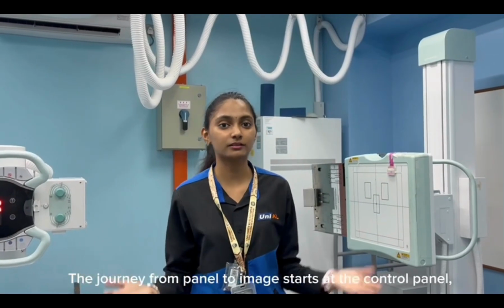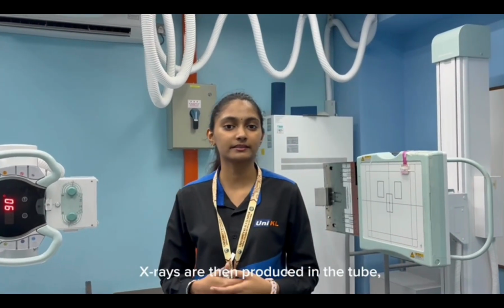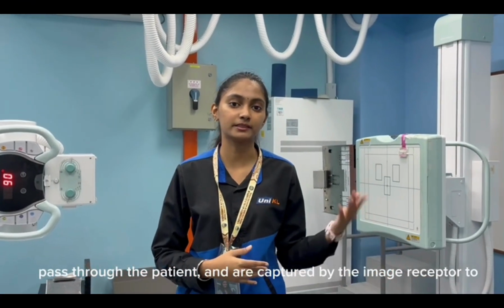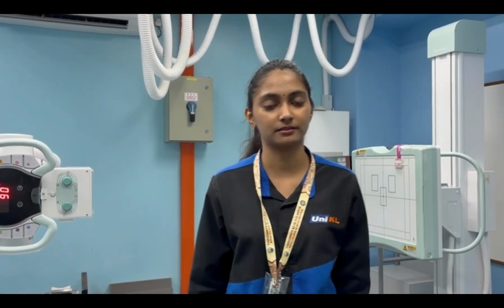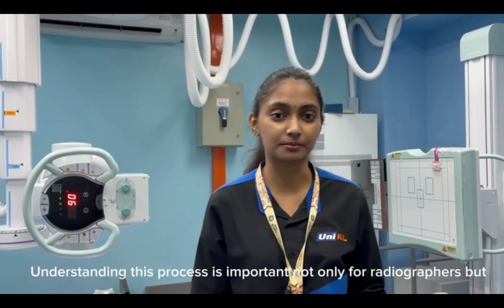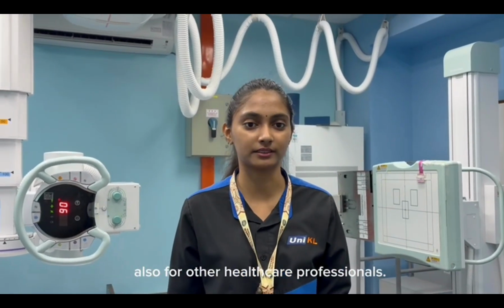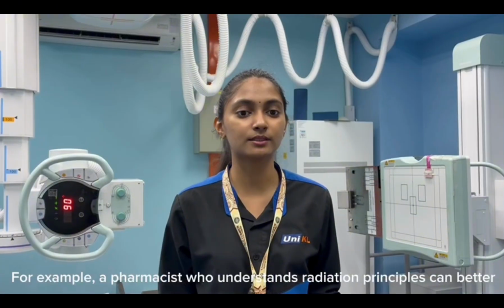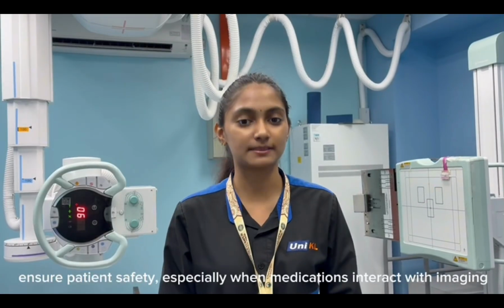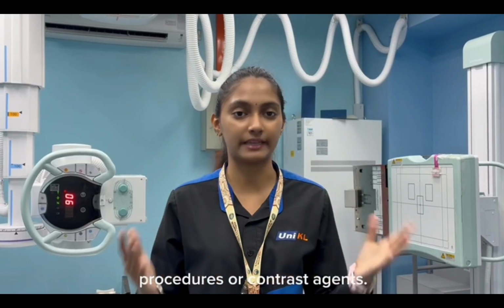The journey from the panel to the image starts at the control panel, where exposure factors are selected. X-rays are then produced in the tube, passed through the patient, and are captured by the image receptor to form a diagnostic image. Important for interdisciplinary collaboration, understanding this process is important not only for radiographers but also for other healthcare professionals. For example, a pharmacist who understands radiation principles can better ensure patient safety, especially when medication interacts with imaging procedures or contrast agents.